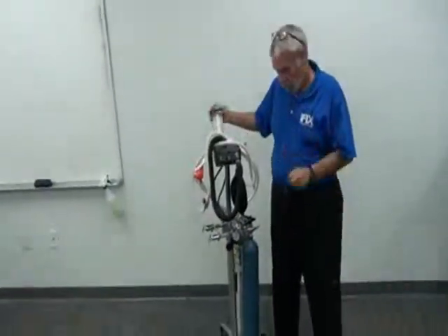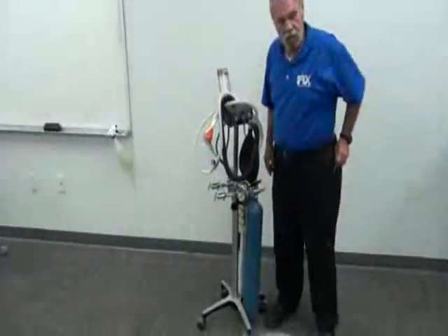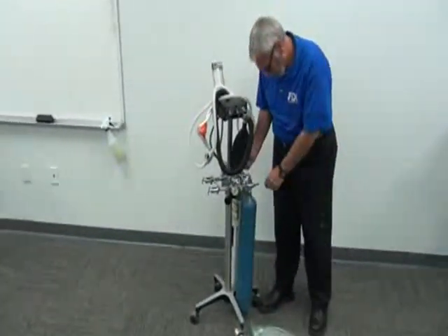Okay? So we have our tanks. Our tanks are suspended like so in the yoke.